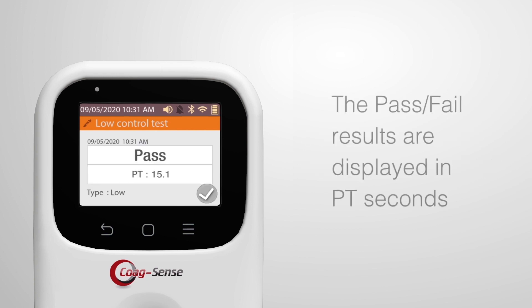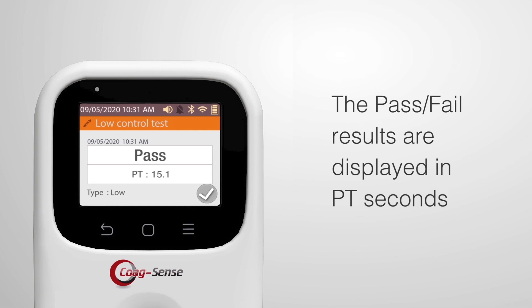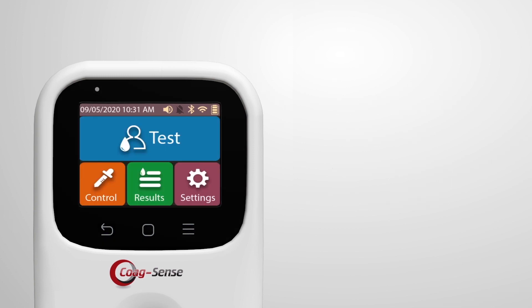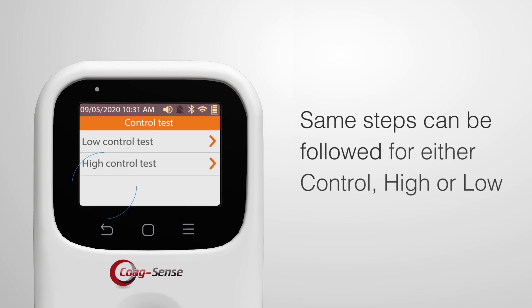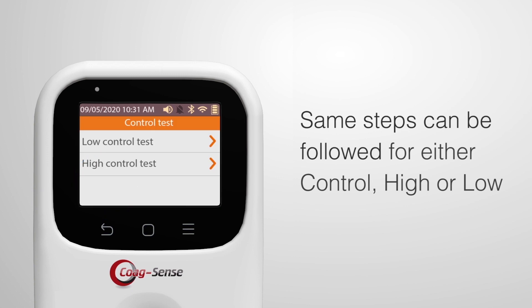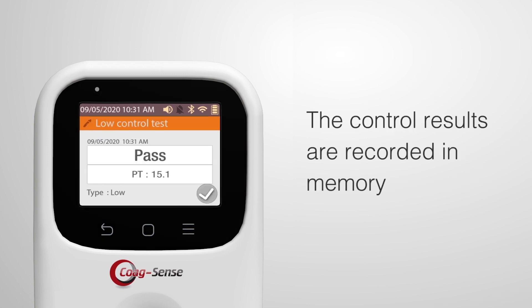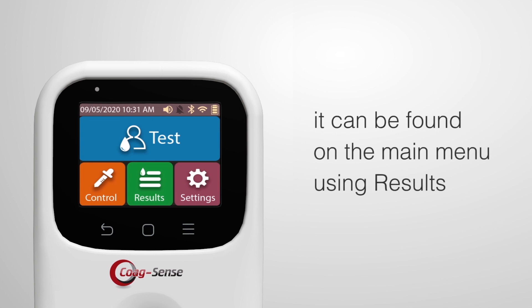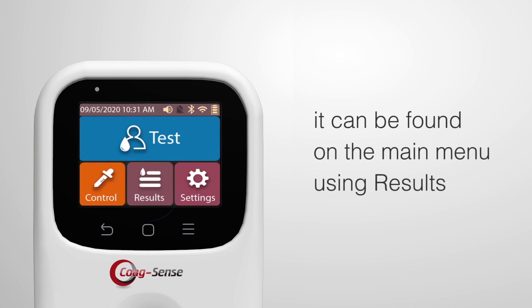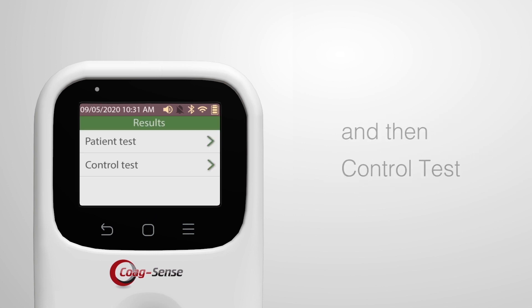When the control activation solution is properly applied and detected, the flashing green light will turn off and the meter displays 'Testing, Please Wait.' When testing is complete, pass or fail results are displayed in PT seconds. The same steps can be followed for either high or low control. The control result is recorded in memory and can be found on the main menu using Results and then Control Test.